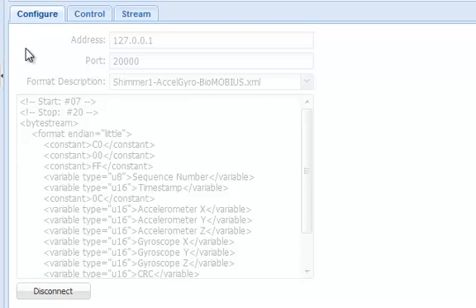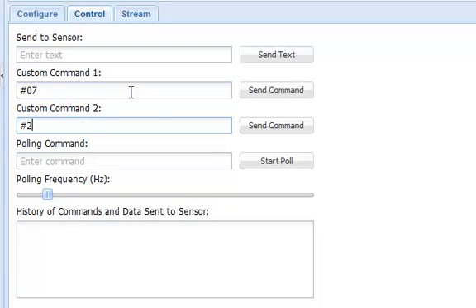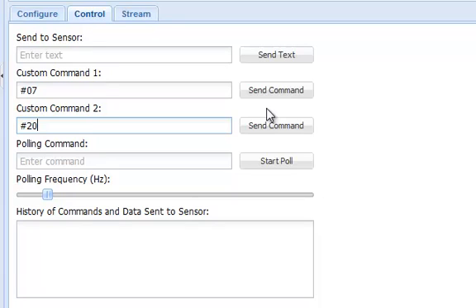I can enter the commands in the fields provided, allowing these two buttons to act as start and stop controllers for the Shimmer device.